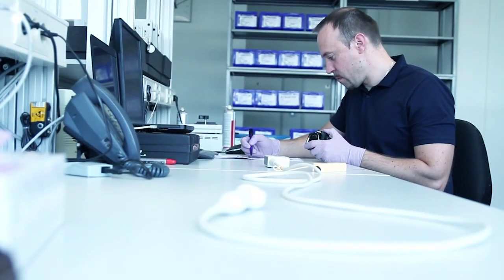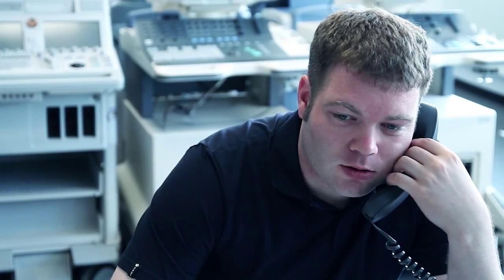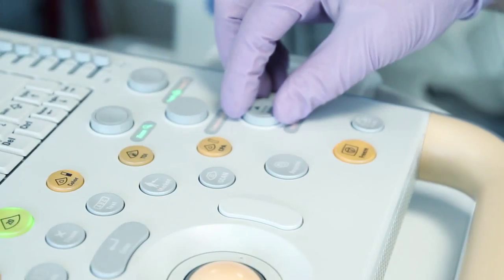Backed with over 15 years of repair experience, thousands of ultrasound probes are handled every year in our European Repair Center here in Freiburg.